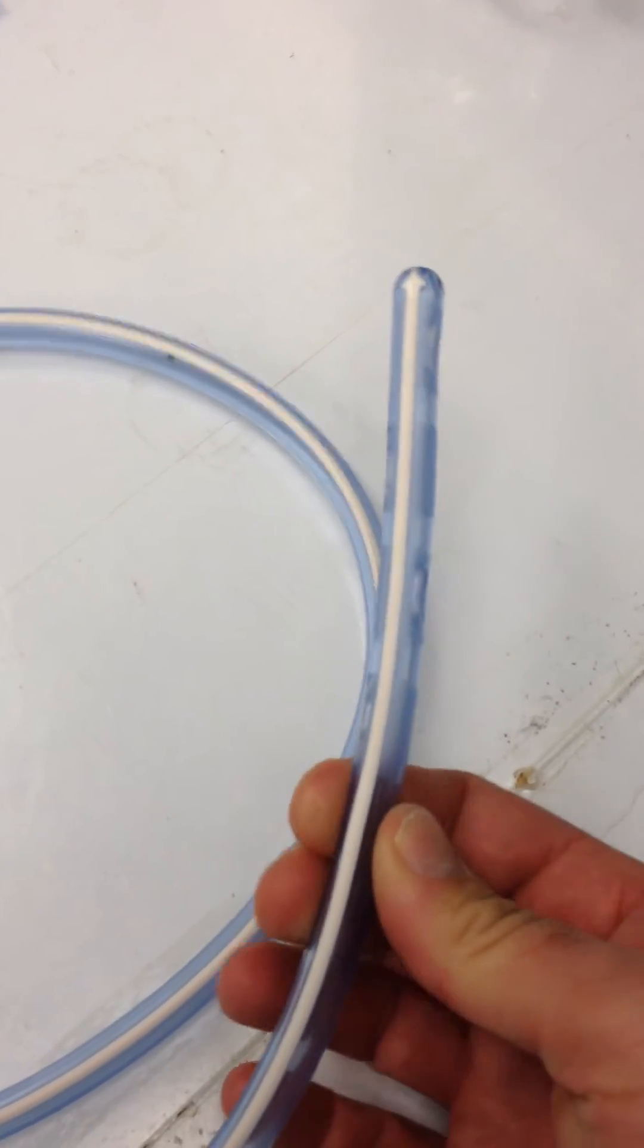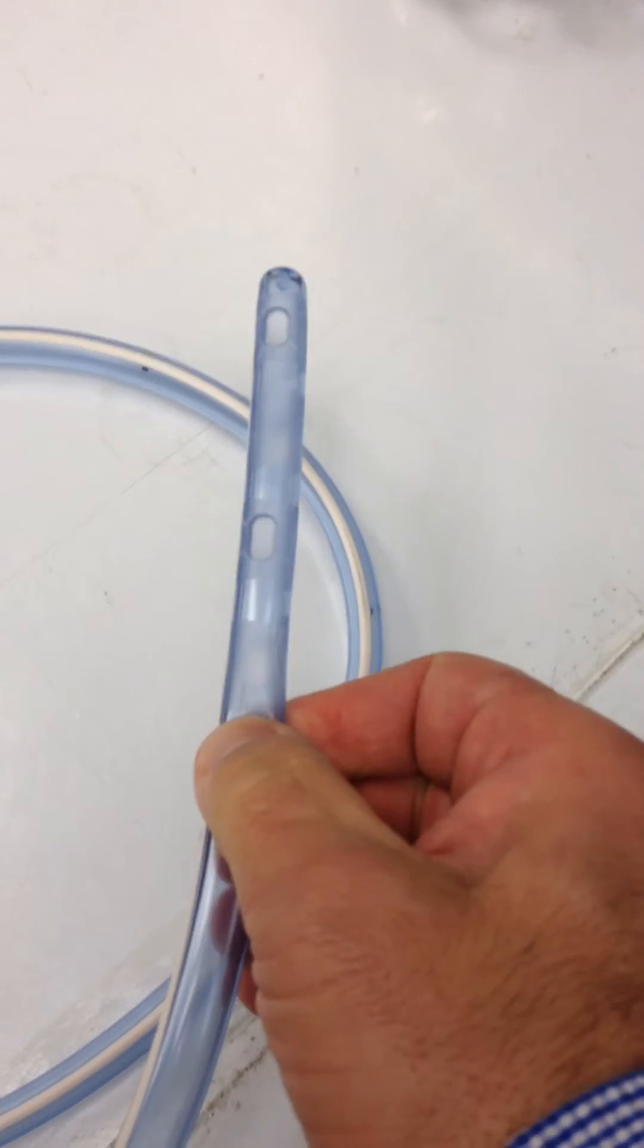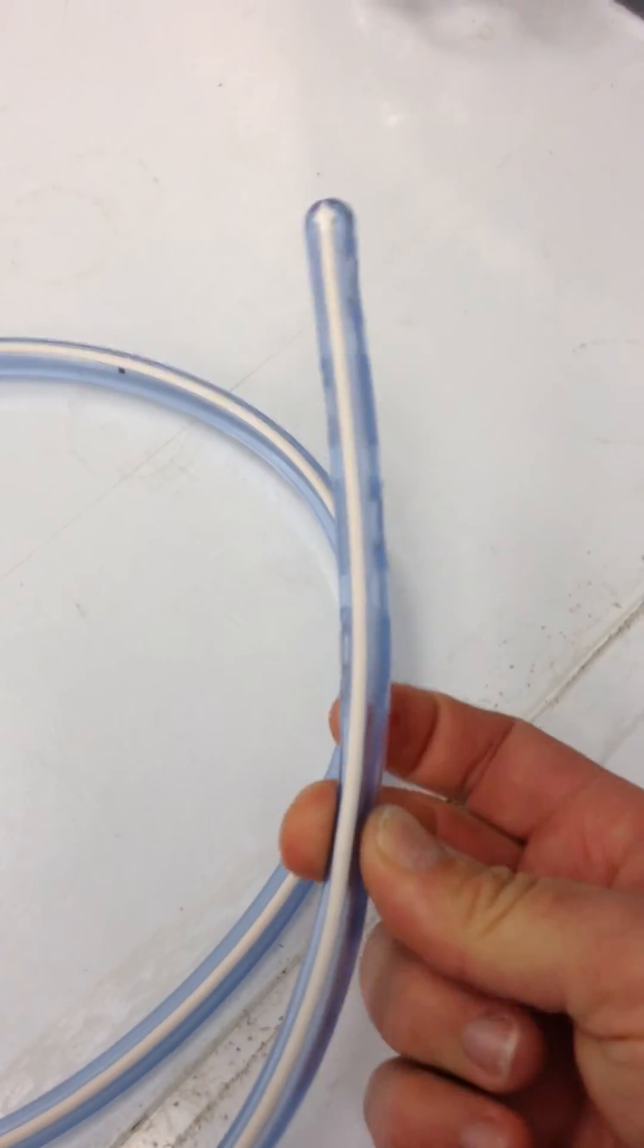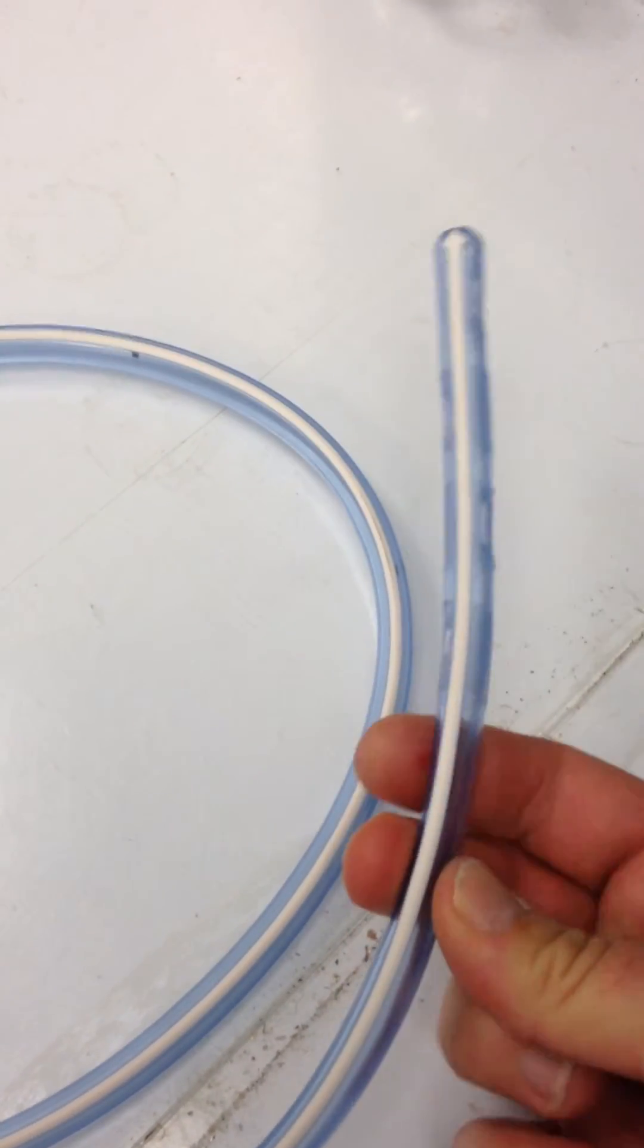This is a PVC material, so it's very flexible, very compliant. There's no internal reinforcement. You can actually see as I'm pressing on it, I can actually distort it even more.